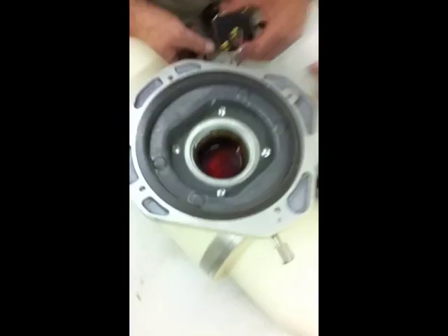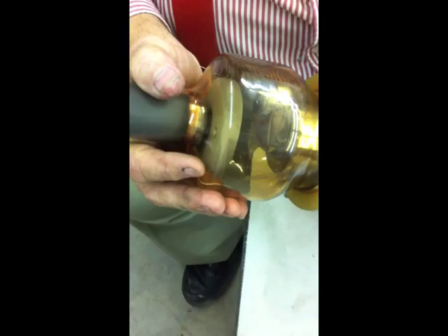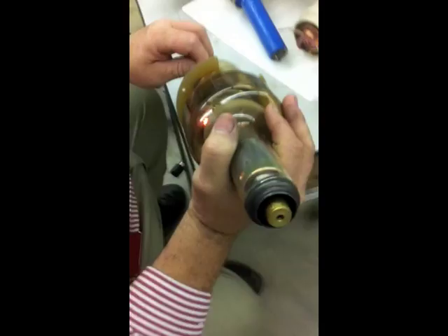What does it do with that other tube over there — the insert? It's cooked. He was having trouble with the filaments. You can see it — that's large. Actually, it's both of them. I see the filament there — it was actually going through both of them. That's one. You get a better shot on this side. It's large by itself. It's black too. So when you apply the KV, it goes through the filament too? Yeah, one side of it. This should be the small filament.